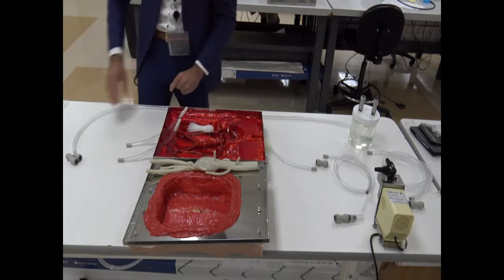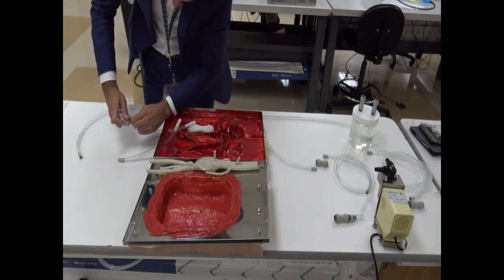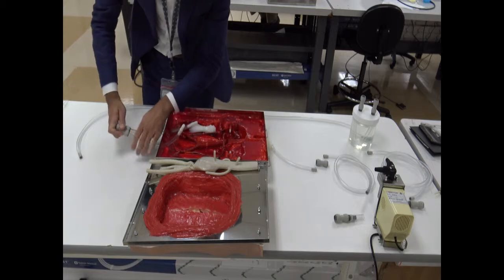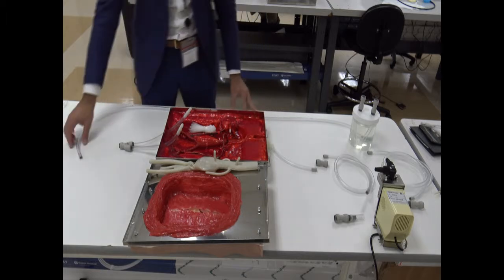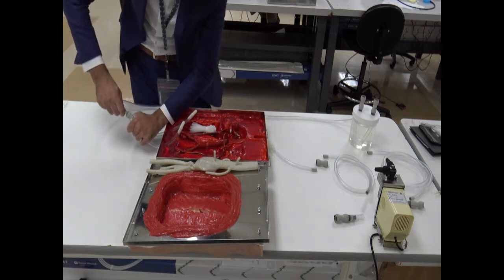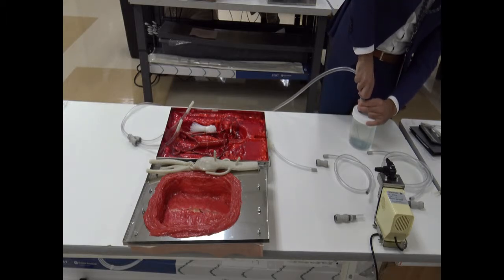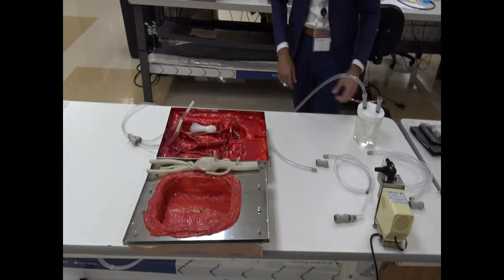As such. Then at this point, what we're going to do is connect the two iliacs to our bifurcation by pressing the tubes until the gray component has been completely introduced on the bifurcation. Then what we're going to do is connect this long tube from the bifurcation all the way down to our reservoir, so we can provide inflow after we have finished the circuit.